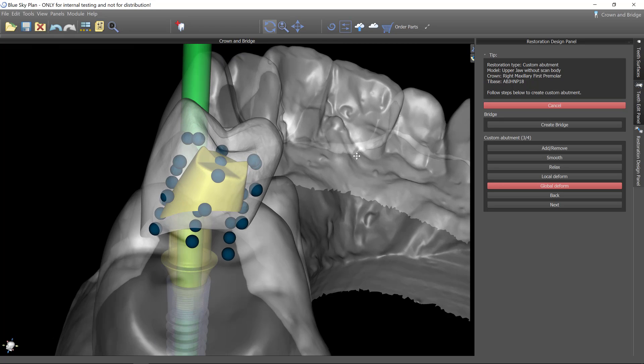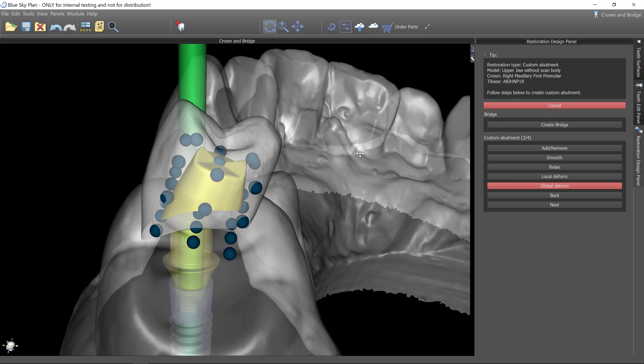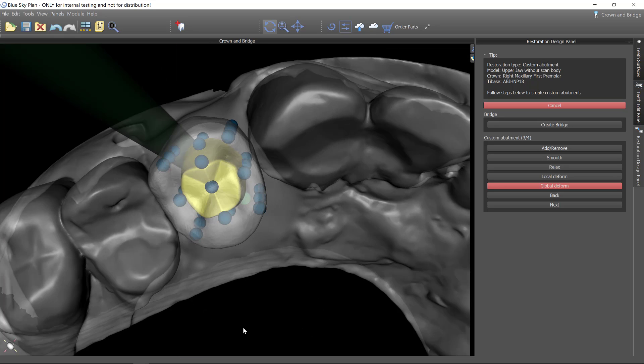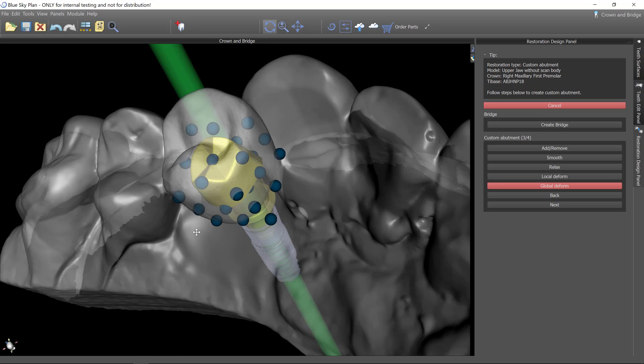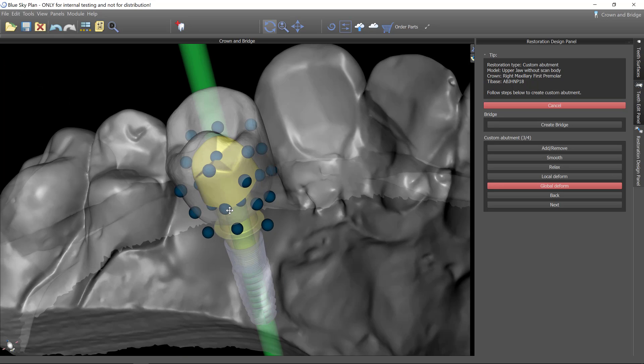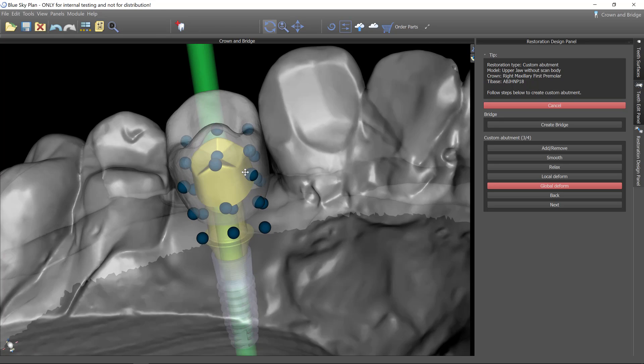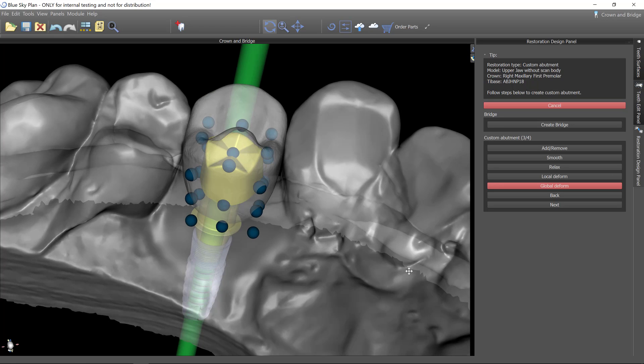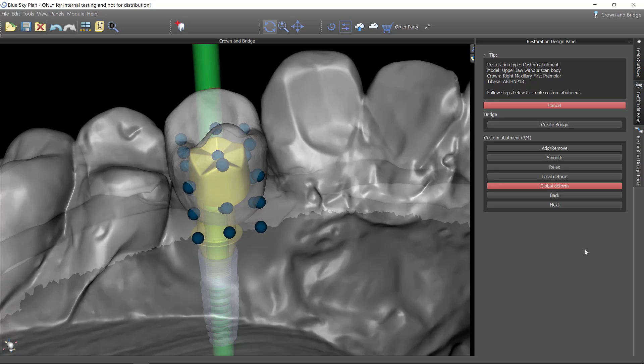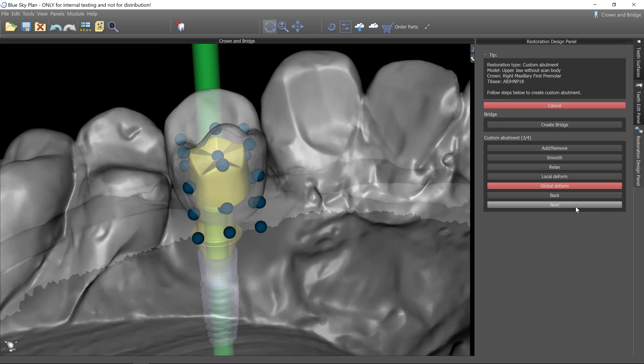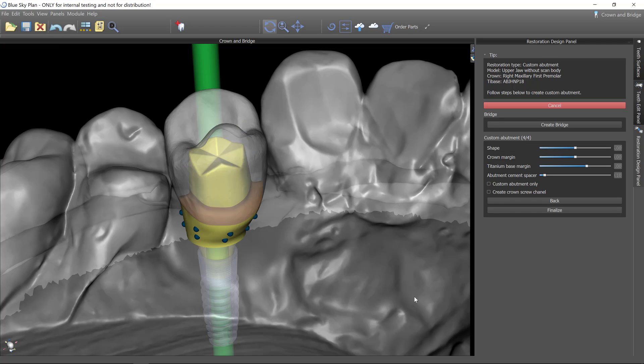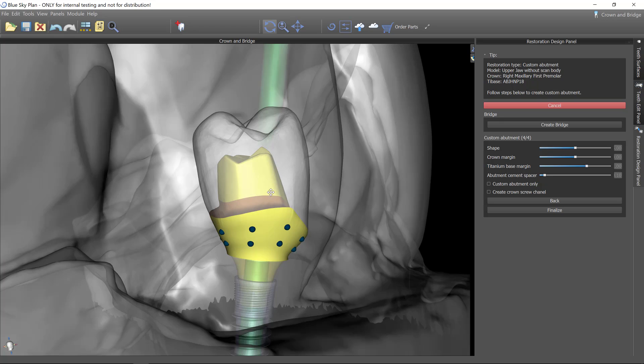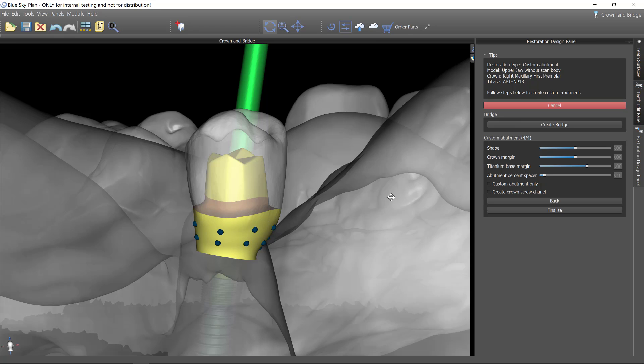So as you can see, it's maintaining that skinny central groove, which is going to have nice thickness to it, but now we have a little bit more of an anatomical shape to this. We could also bring up the marginal ridges if you desired to. So let's go with this. You can shape as much as you want on that.